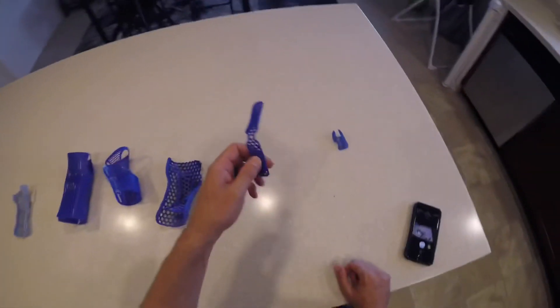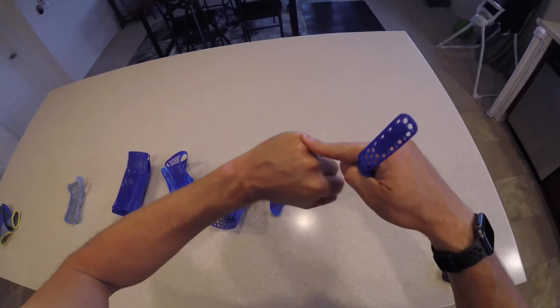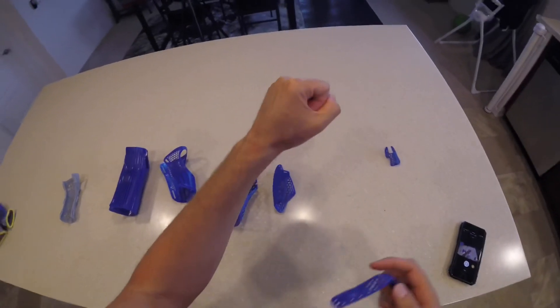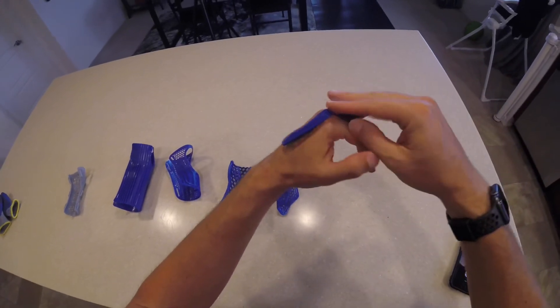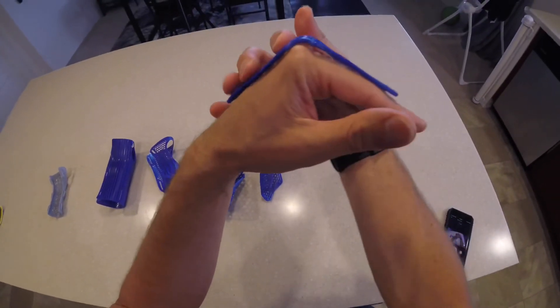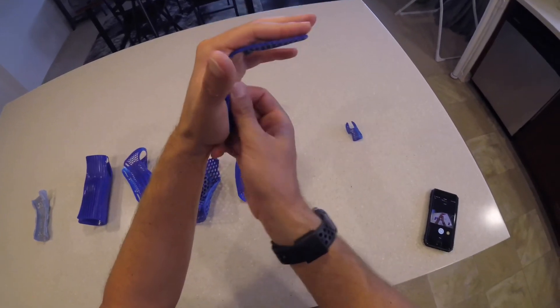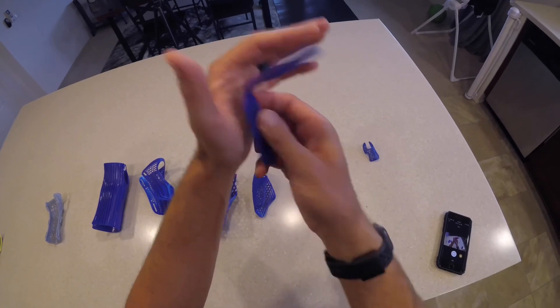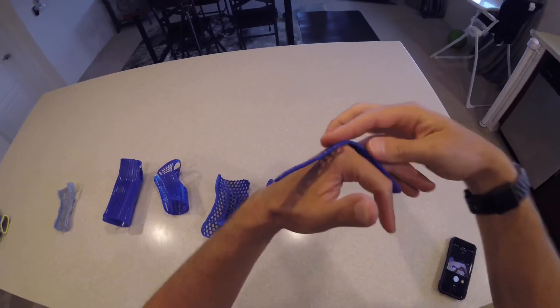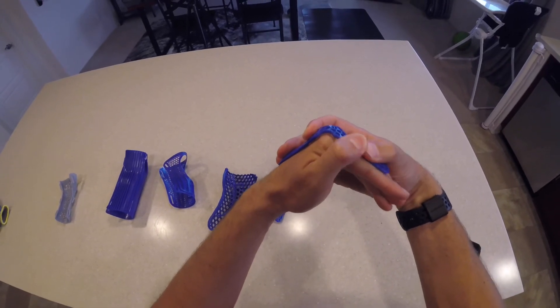Their finger splint design is really cool. Fractures in the fingers are common - in the proximal phalanx, middle phalanx, and at the finger joints - usually from punching or defending. In the textbook they're splinted on the palm side, however I found most people really hate anything against their palm because the palm is so much more sensitive than the back of the hand. So you can splint it on the dorsal side instead, then just run your Velcro. That goes for all of these splints.